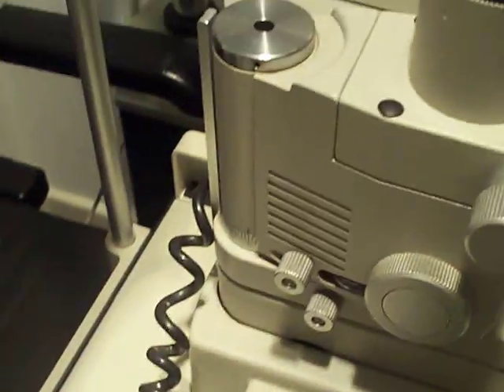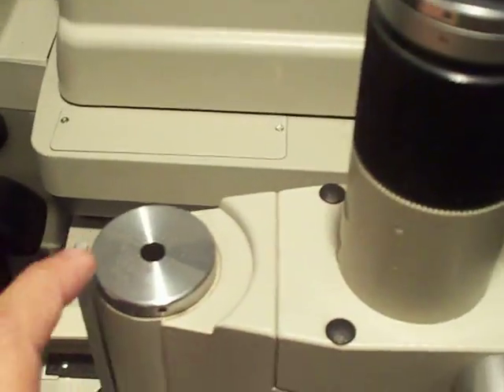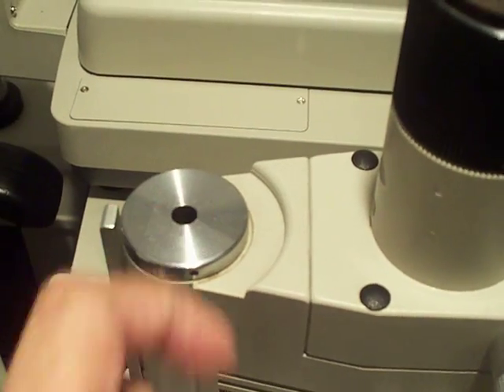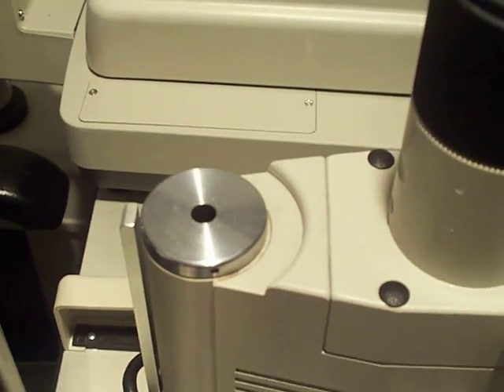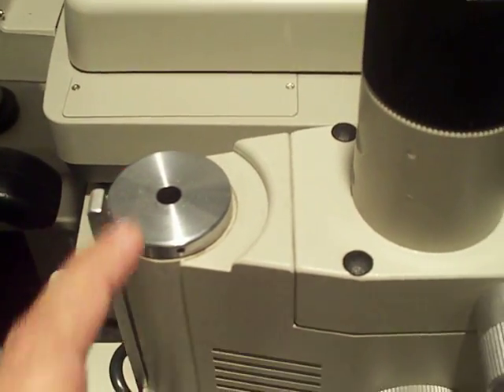Simply, if you look at your slit lamp, you will see on the arm there is a hole. Sometimes this hole is blocked with a rubber plug.